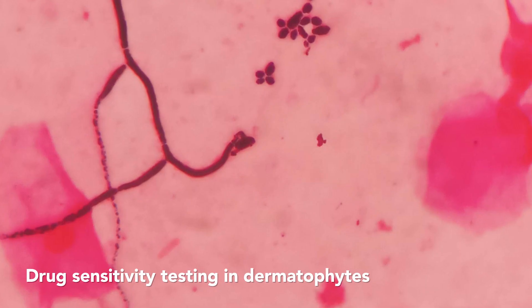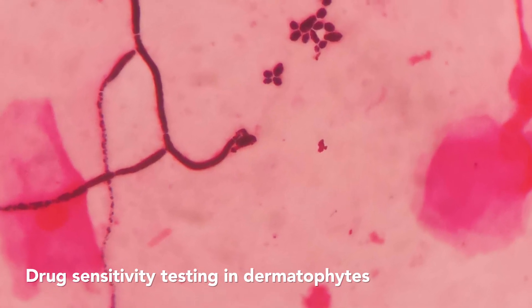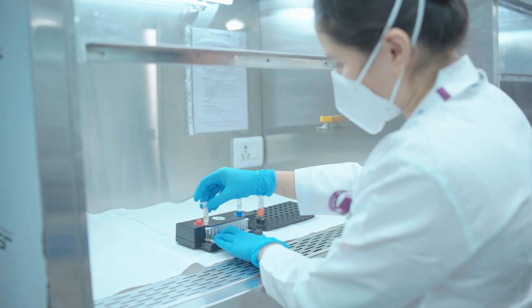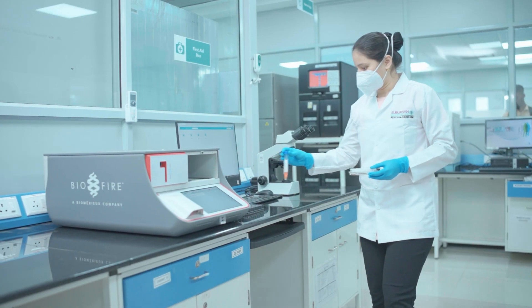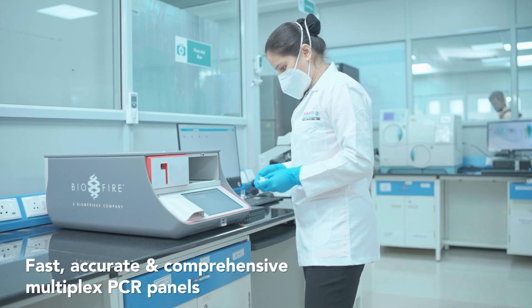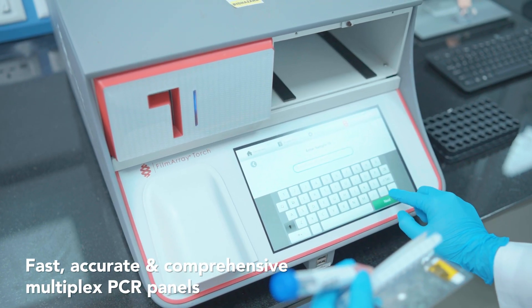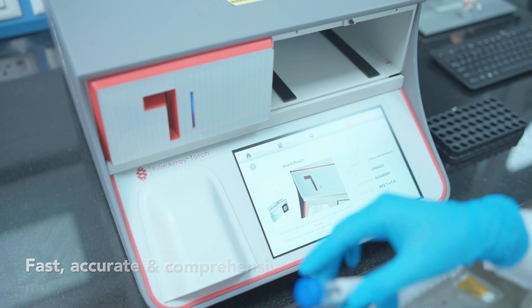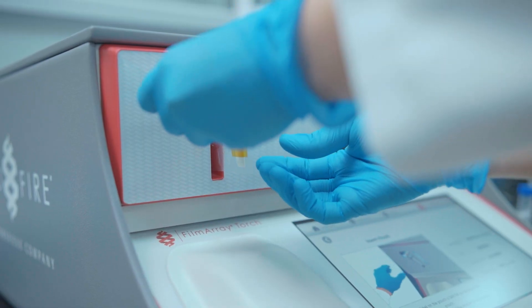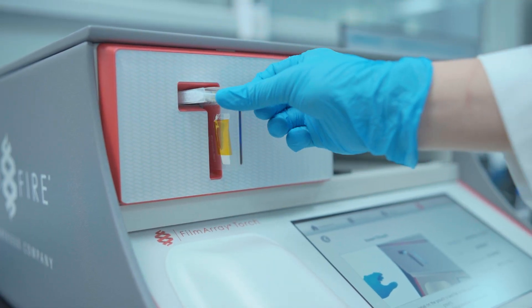BioFire film array panels are fast, accurate, easy, and comprehensive multiplex PCR panels that rapidly diagnose life-threatening infections like sepsis, meningoencephalitis, and severe pneumonia.